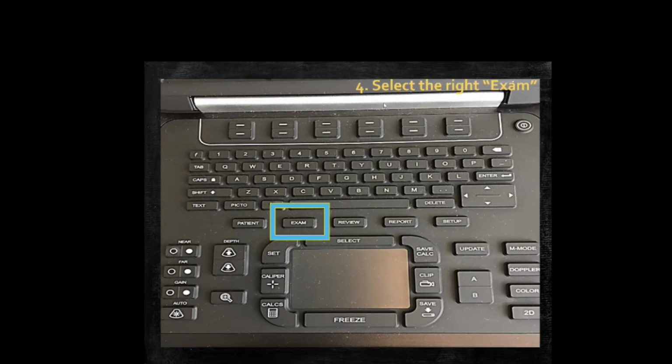This predominantly is important because it's a time-saving exam. Historically, I've seen lots of people being unfamiliar with using this ultrasound, and so what they'll do is they'll complete a cardiac exam in abdominal mode, and the image quality doesn't really suffice when that happens. So this is really key. Just make sure you select the right exam to start off with.